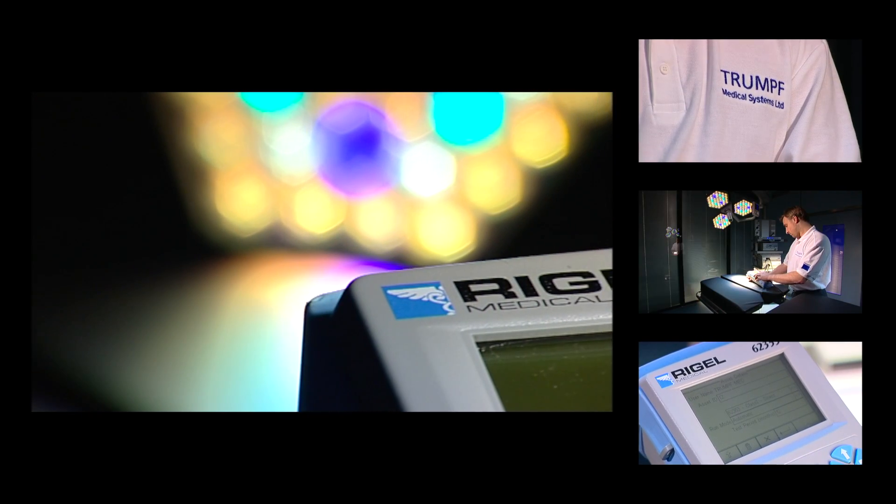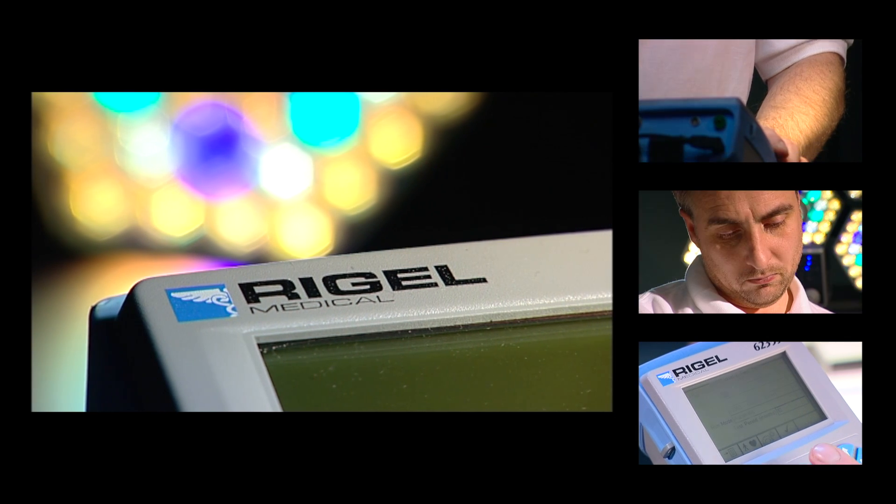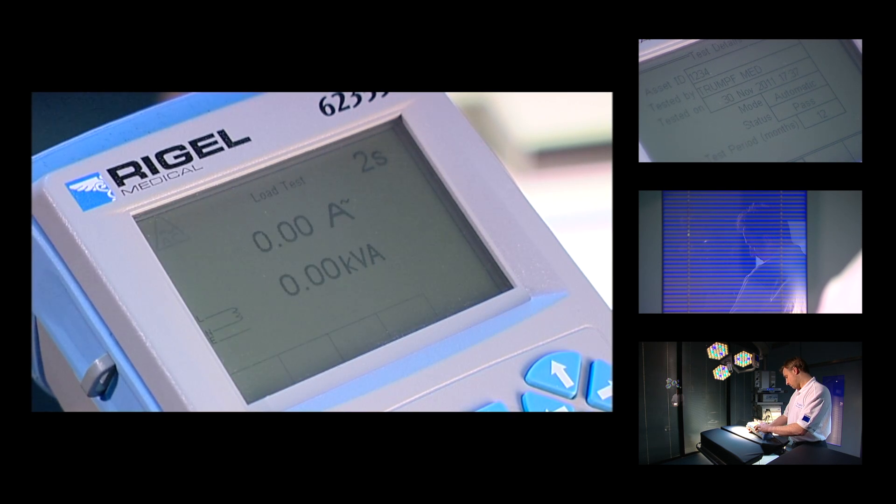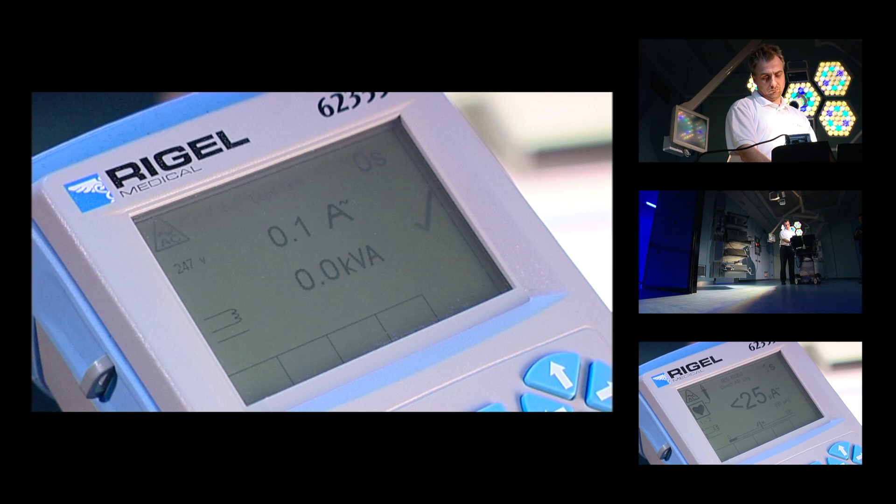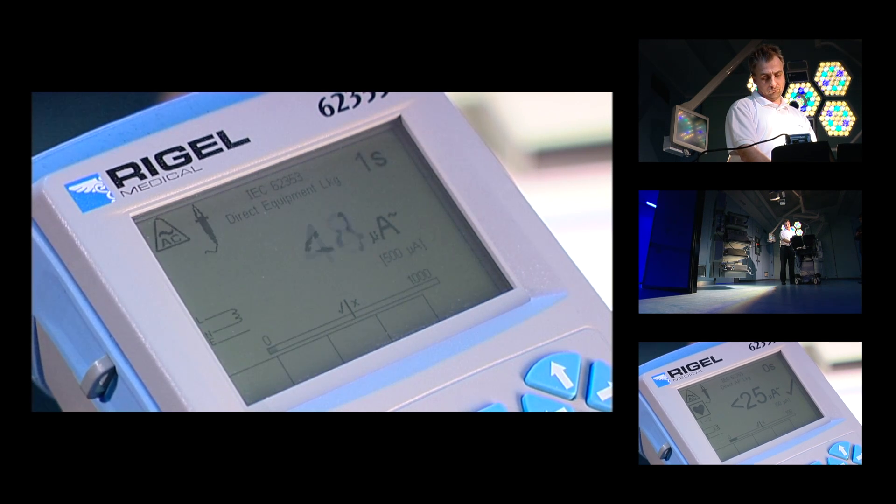The Rigel 62353 safety analyser is a dedicated tester for the IEC standard. The 62353 enables a one-touch solution for us predominantly, so rather than going through various different tests and various different standards, we just simply know to go through one menu.